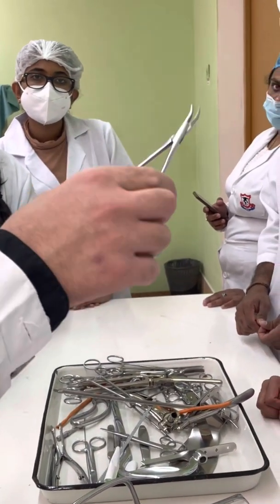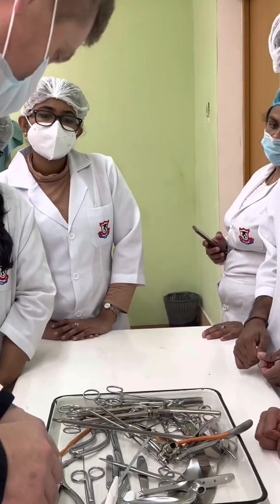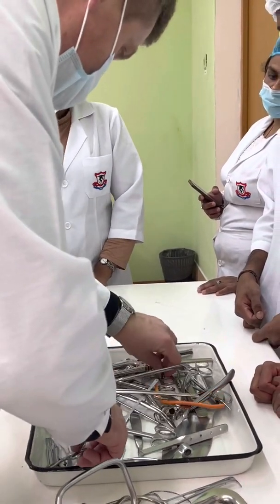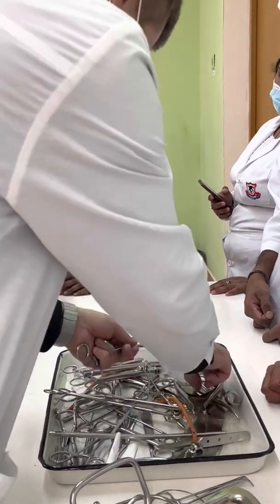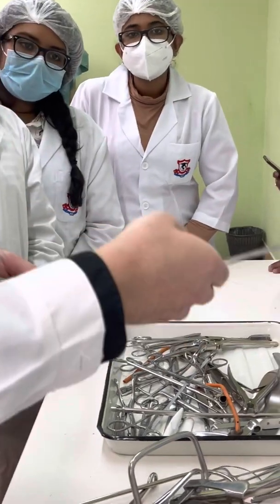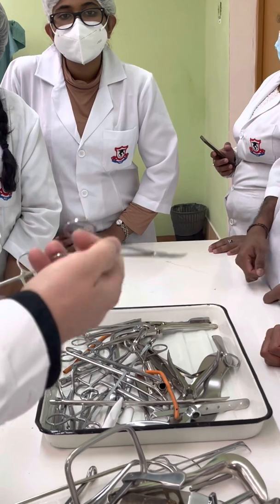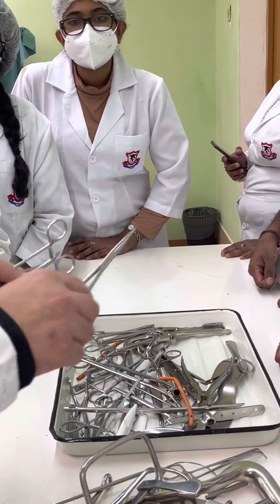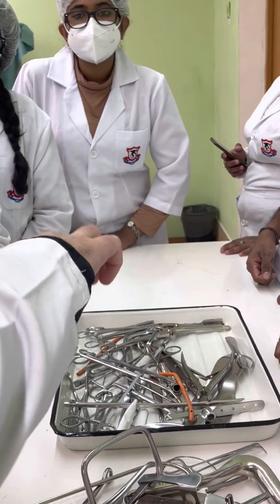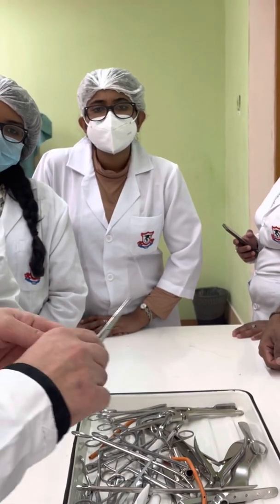Here, Pean's forceps curved — Pean's hemostatic forceps. We also have mosquito hemostatic forceps curved, Billroth hemostatic forceps straight and Billroth hemostatic forceps curved. Here, Kocher's hemostatic forceps curved and straight.